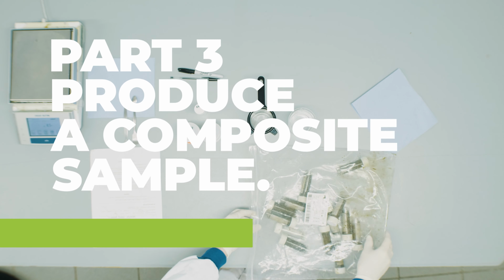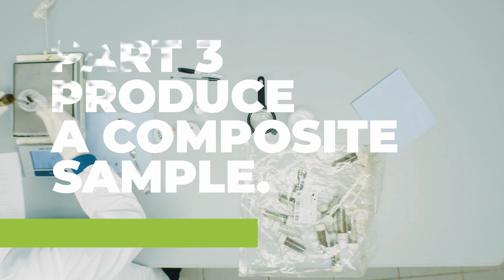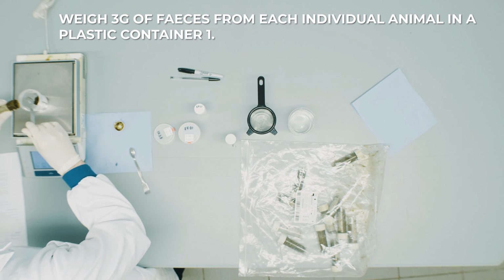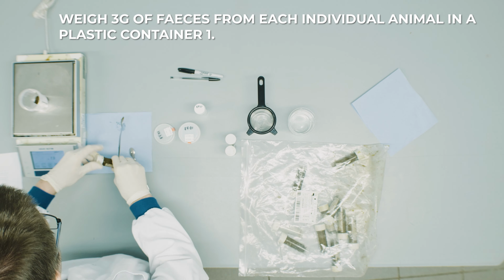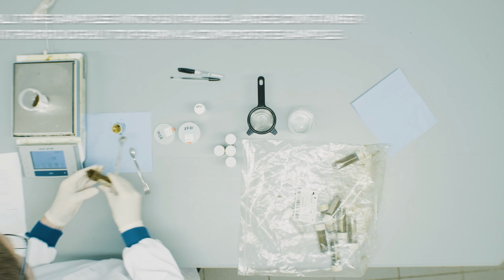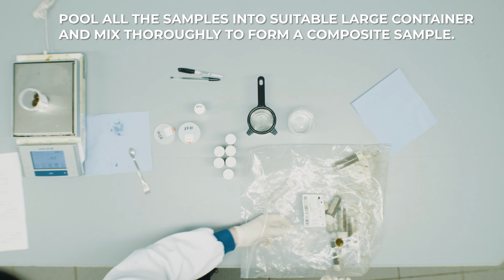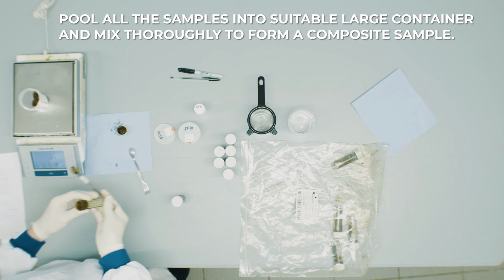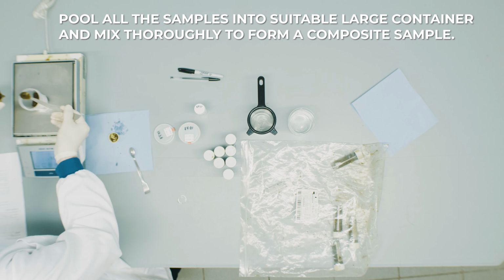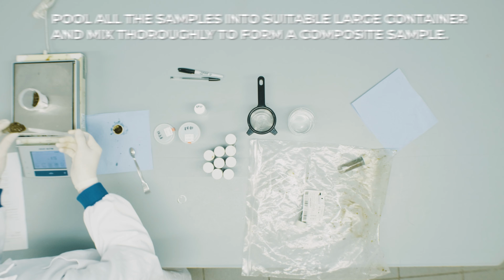3. Procedure to produce a composite sample for testing in beef. Firstly, weigh 3 grams of feces from each individual animal in a plastic container 1. Pool all the samples into a suitable large container and mix thoroughly to form a composite sample. For example, if samples were submitted from 10 individual animals, you should now have a 30-gram composite sample.